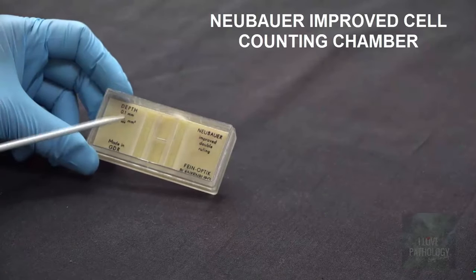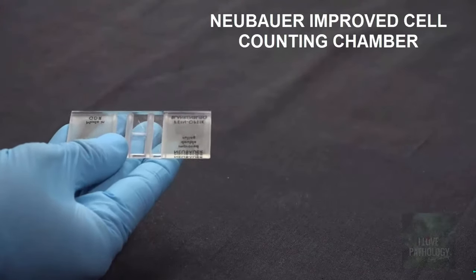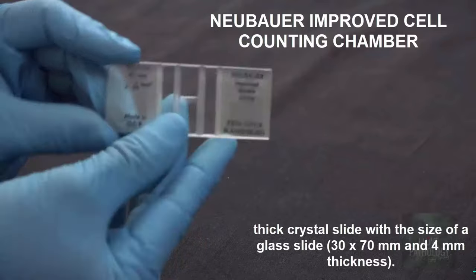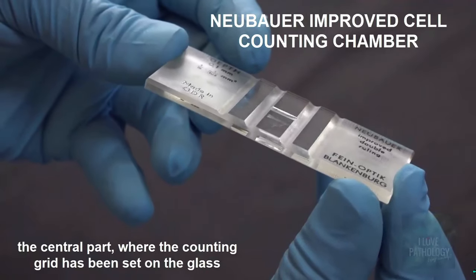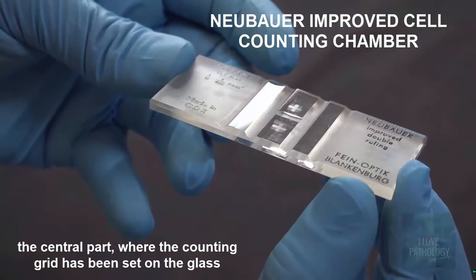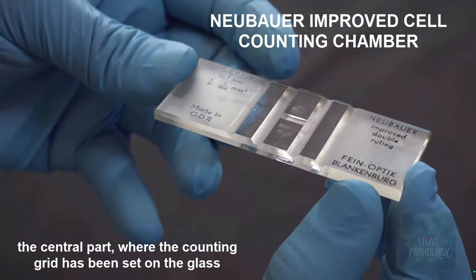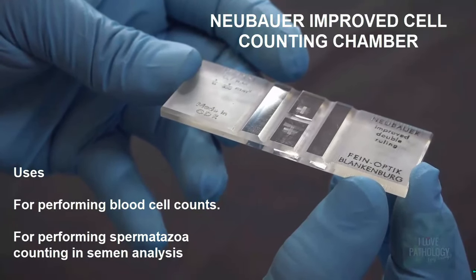This is a Neubauer chamber — improved Neubauer chamber, to be more specific, because the lines in this chamber are very clear. This is a thick crystal slide which is around 30 by 70 mm and 4 millimeters thick. In the center of the slide you have a counting grid — a plus shape — which is 3 mm by 3 mm. It has 9 big squares, each square being 1 mm by 1 mm. Uses: counting of cells — RBC, WBC, platelets — and also for counting spermatozoa in semen analysis.